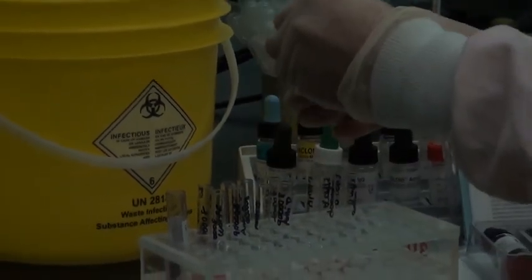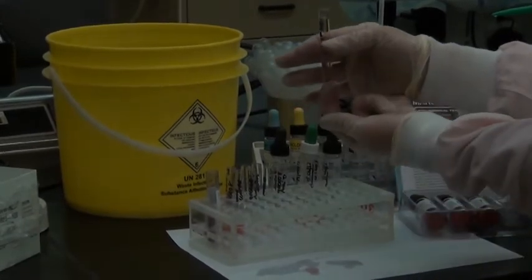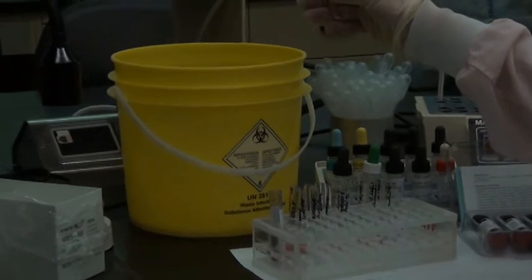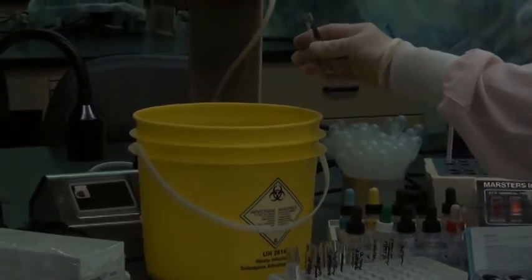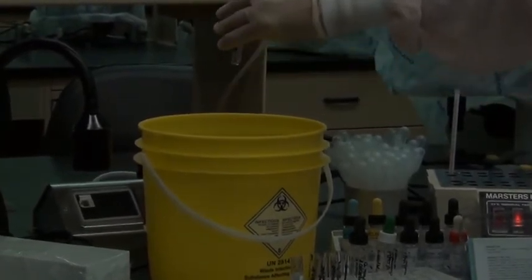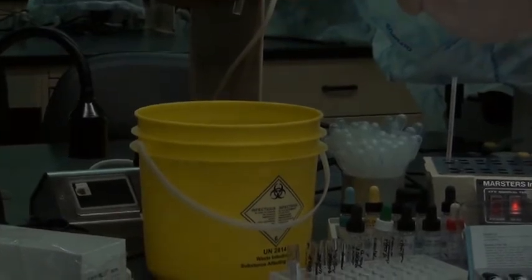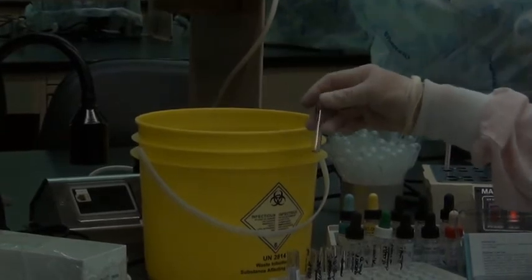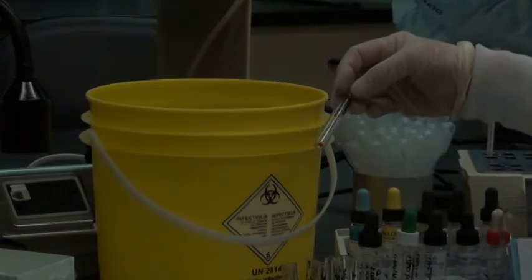Actually, I'll dump with my other hand just so that you have a better view. So you can see the cells down there, they're against the palm of my hand. And I'm going to dump hard. Okay, you ready? So a nice hard dump. Do you see some liquid down there at the bottom of the test tube still? Bring your test tube up a little bit and push that out and back up. And see, we've still got cells in there. We're fine. They didn't fall out.